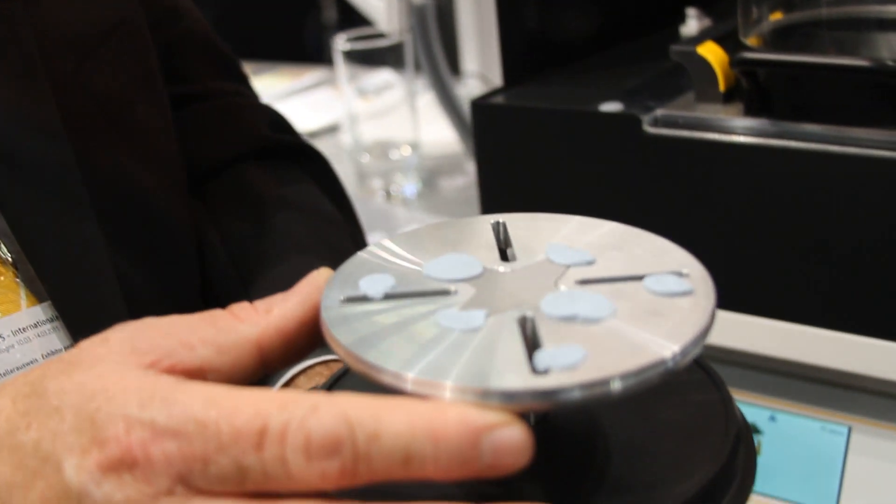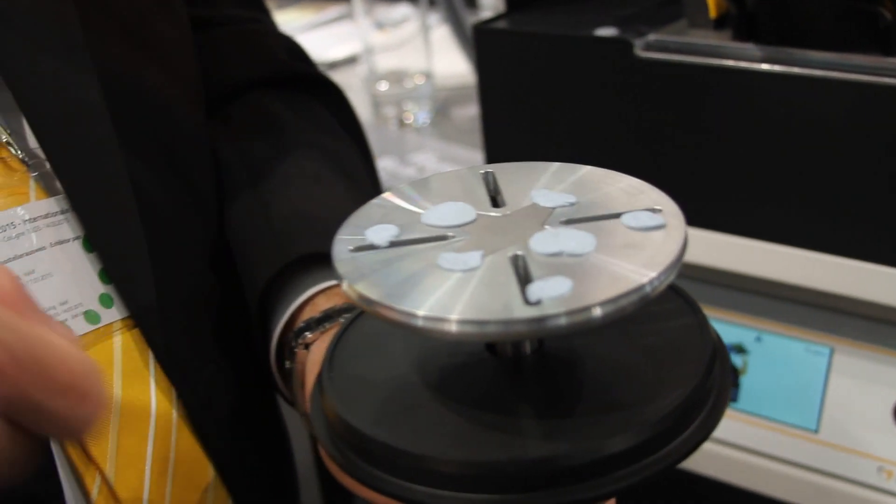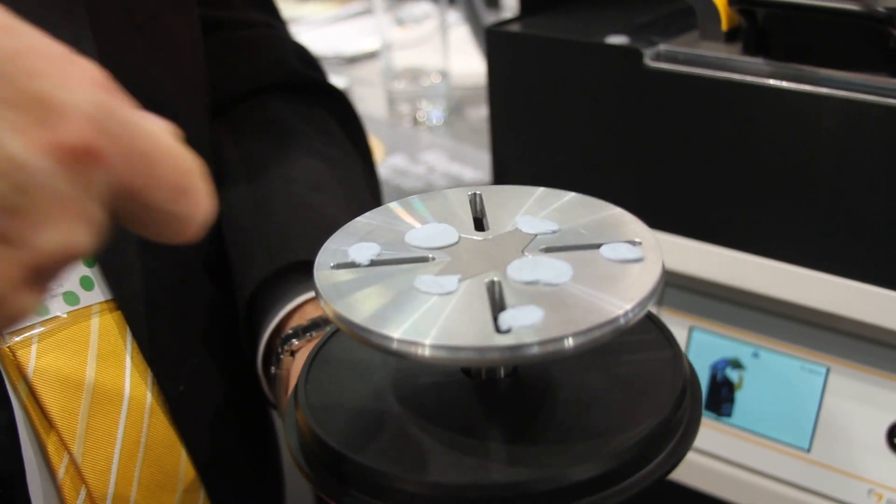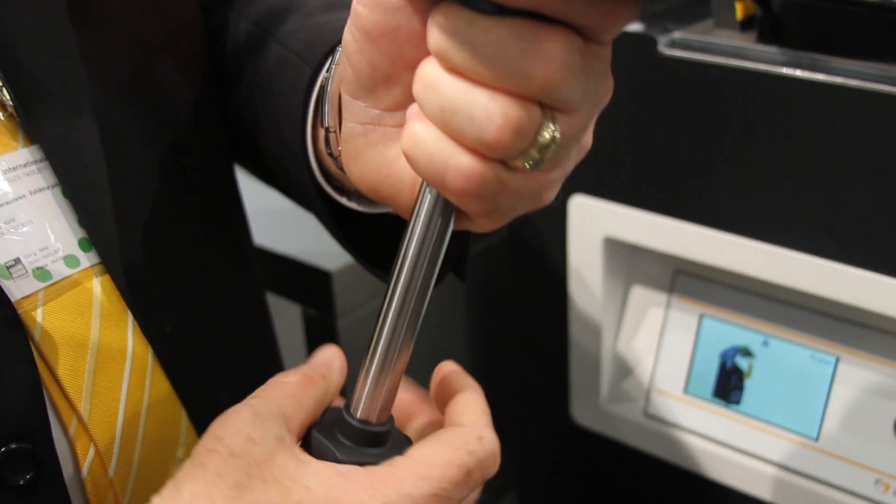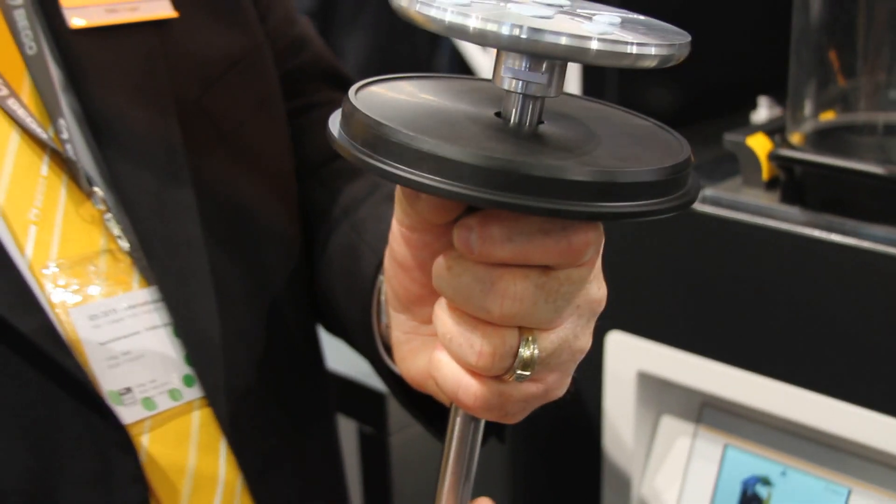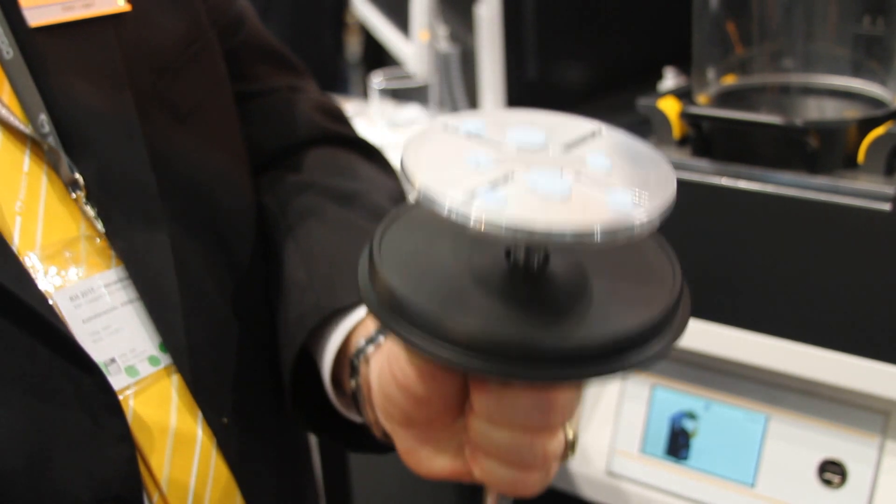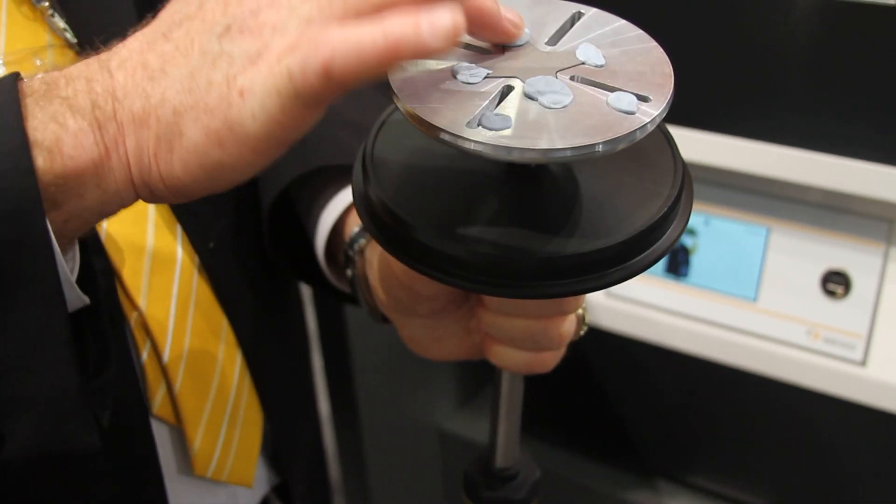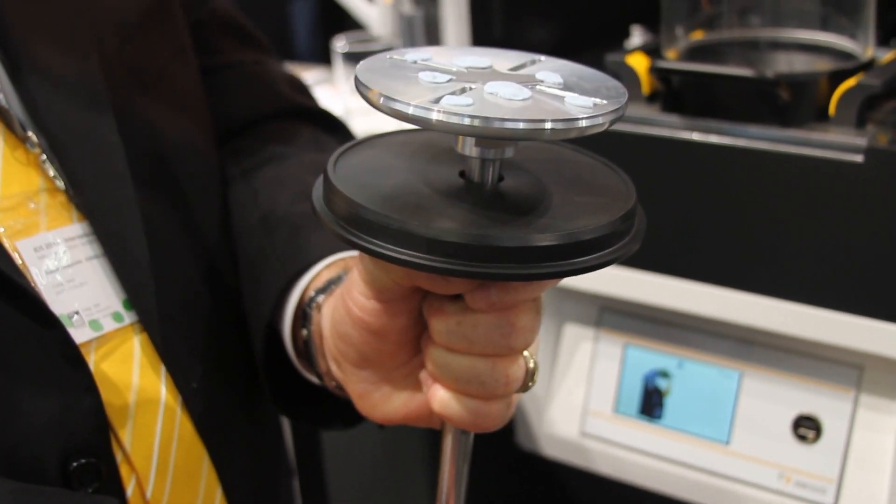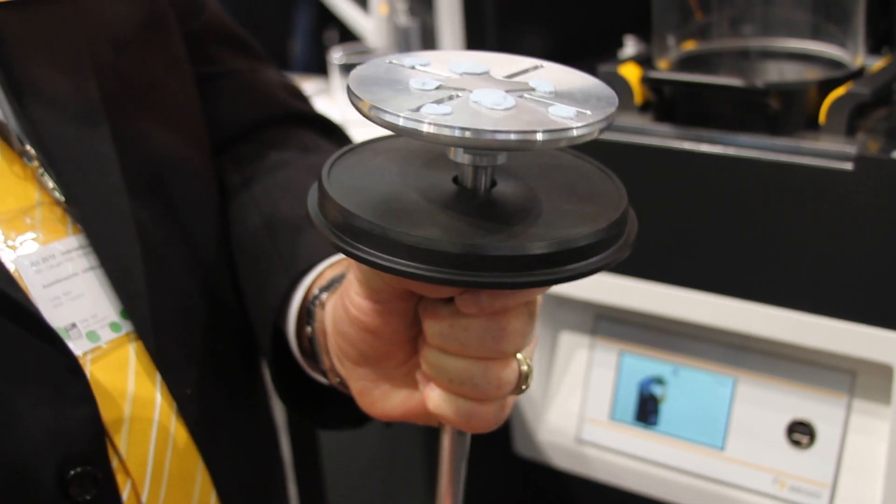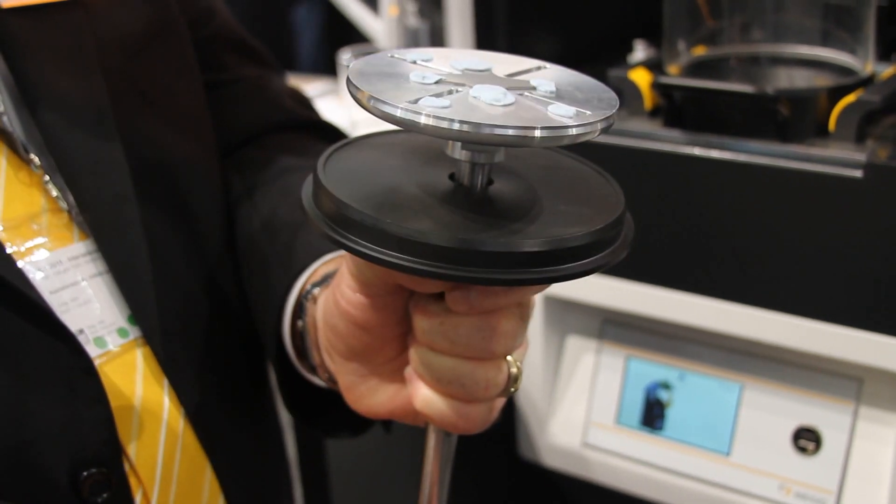Usually in most 3D printers, they use a scraper or spatula to pry it off the base. They put their thought process into it and added a key release on the base. That way it's an even release, so less distortion as well.